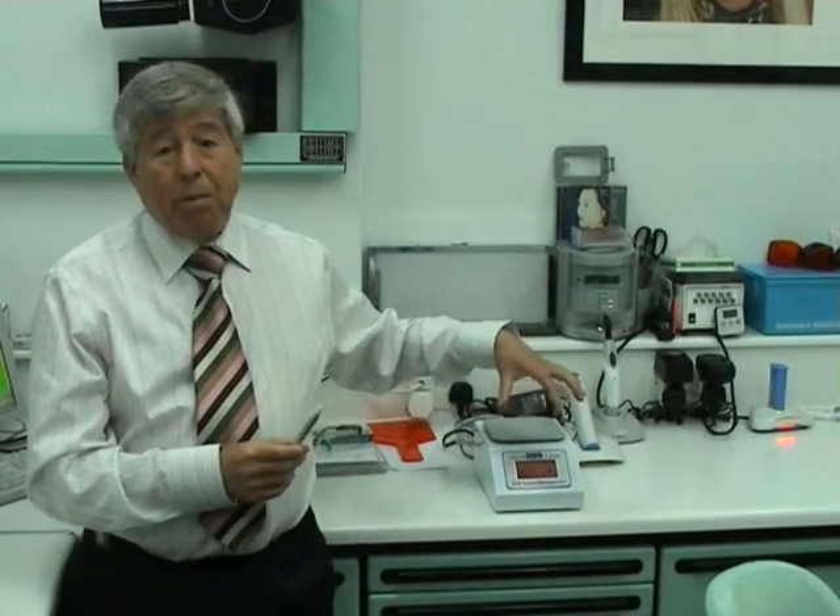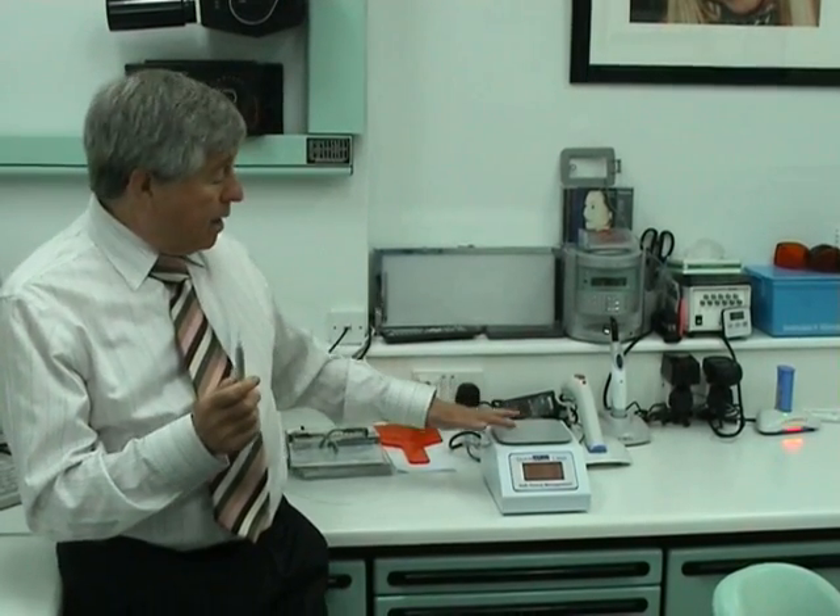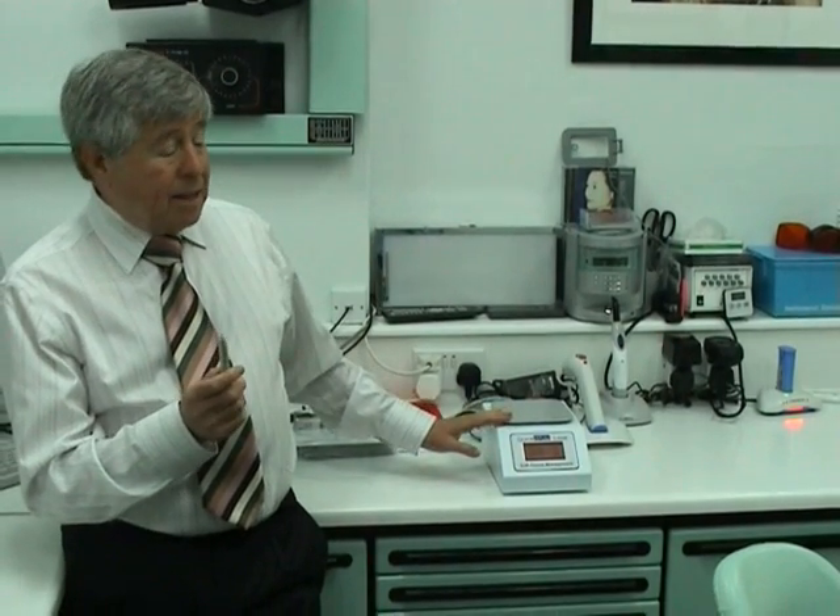One feature is that the laser has its own inbuilt battery. So if you want to disconnect it from the mains and use it in another surgery, or just go down to the hygienist's surgery to do a little bit of tissue contouring, it's really easy. And you don't have cables all over the place. With the other lasers, we had to roll them up really carefully — they'd get caught in the drawers and break.